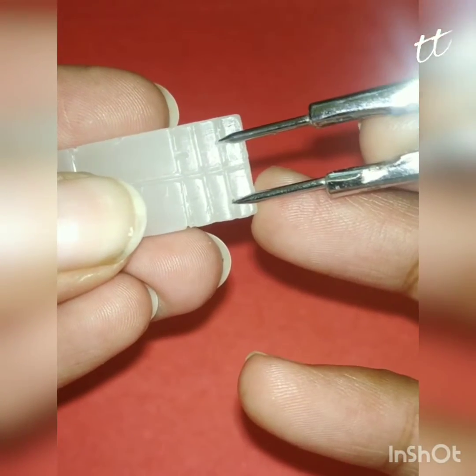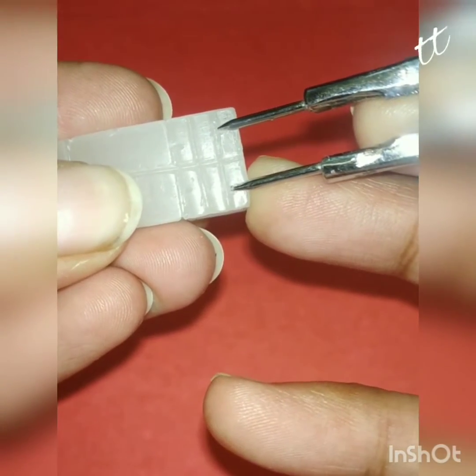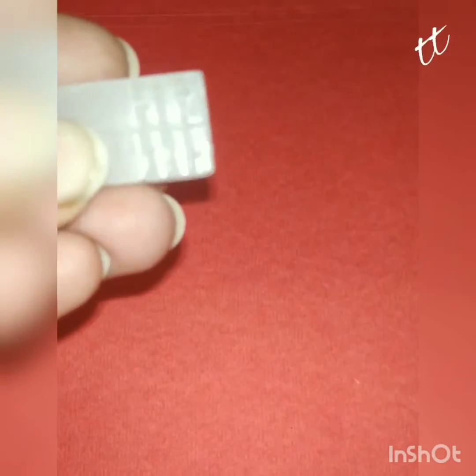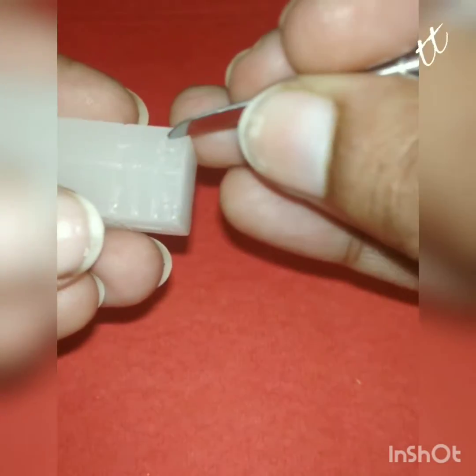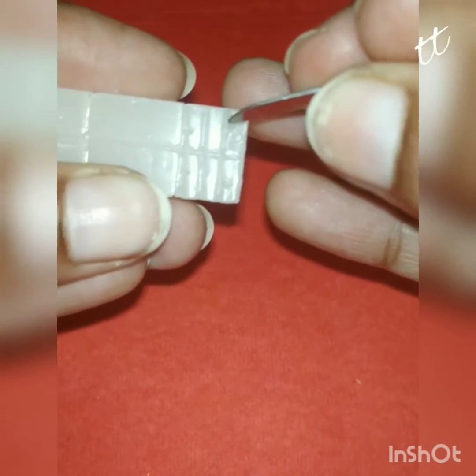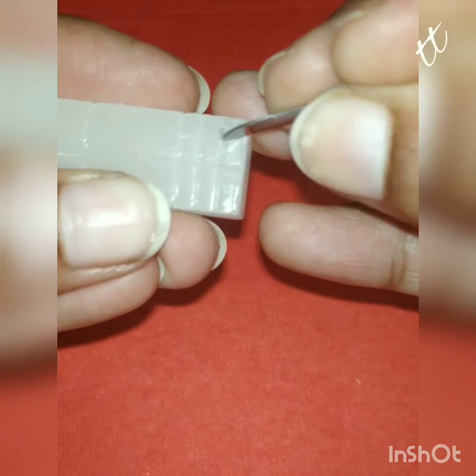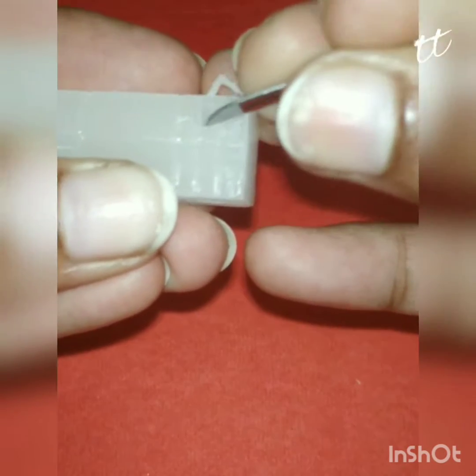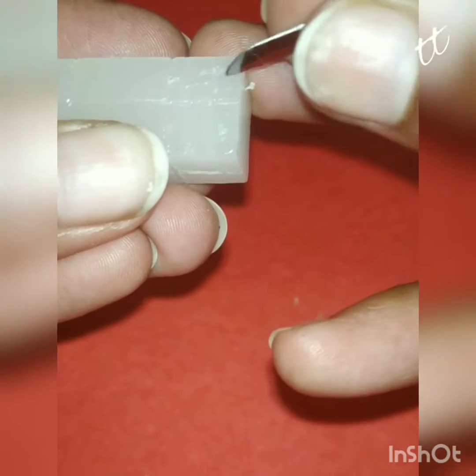Now we'll draw these lines to get a trapezoidal shape, and we'll do the same on the lingual side also.